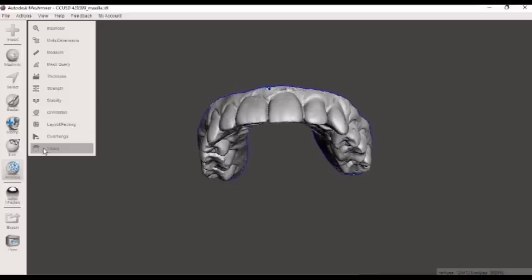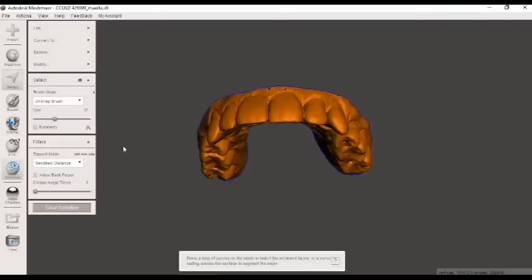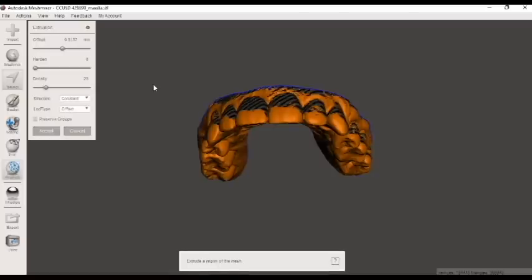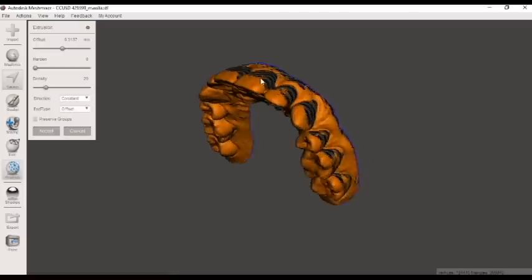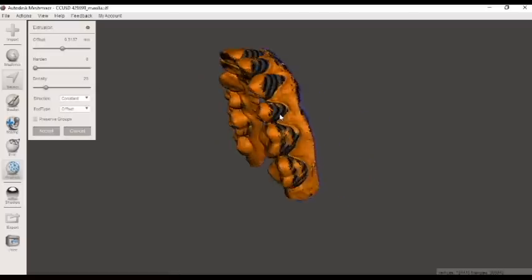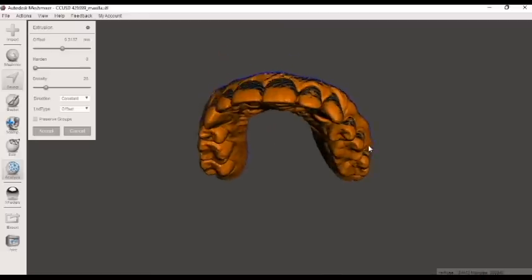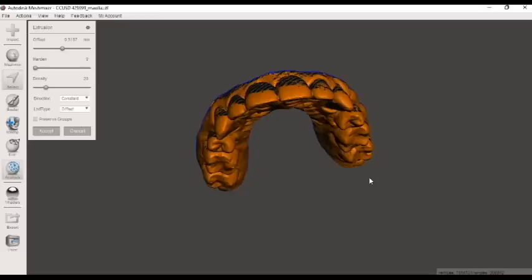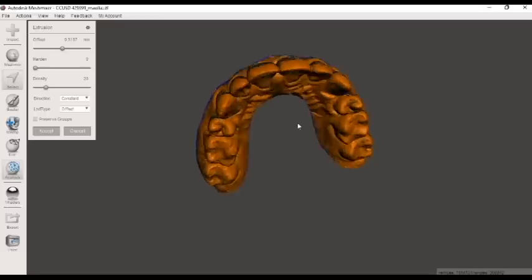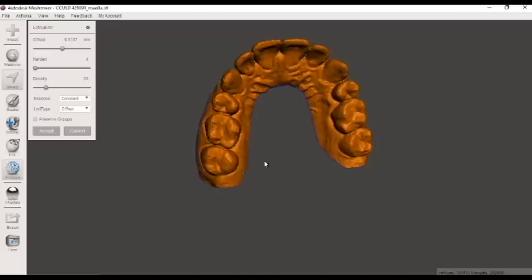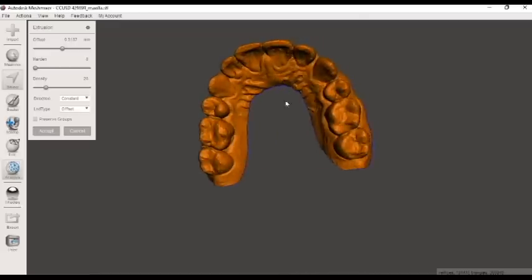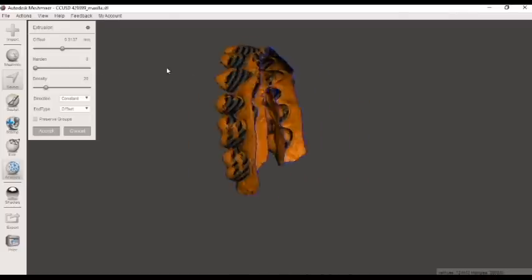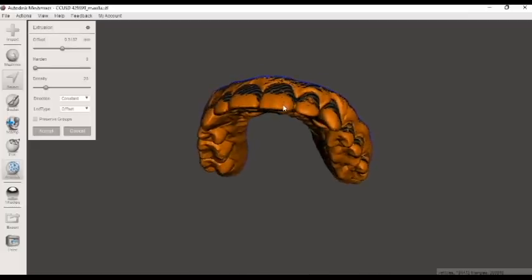Now to extrude the model, you can use Ctrl A on your keyboard to select the whole part. We will come up here to edit and select extrude. When you see the model turn to this funny black lined part inside of the orange, you know you've got it right. Sometimes this part can turn a dark purple, red color, and it'll tell you at the bottom that it is not actually extrudable. So maybe you didn't choose that inspector key and fill your holes again. It for some reason doesn't like the boundaries aren't clean. Usually it's because of a hole.